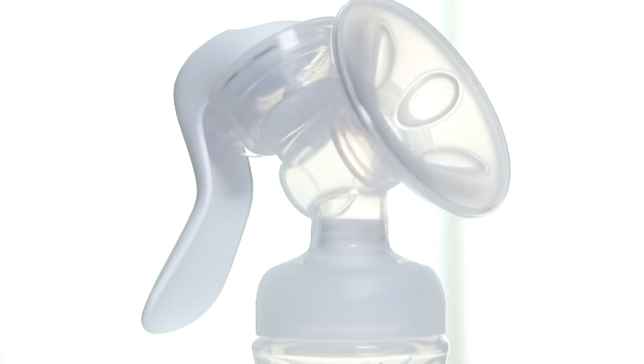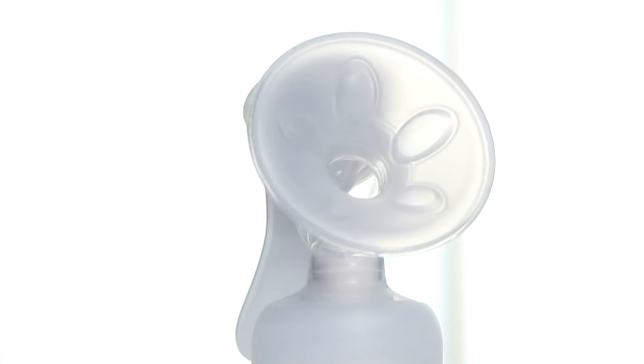Assembling the Philips Avent Comfort Manual Breast Pump is easy and can be done in a few simple steps.